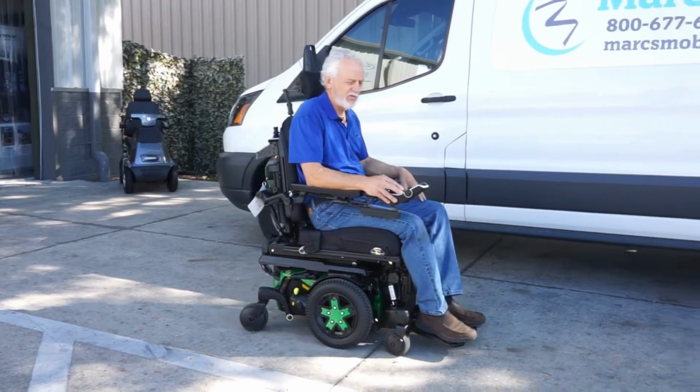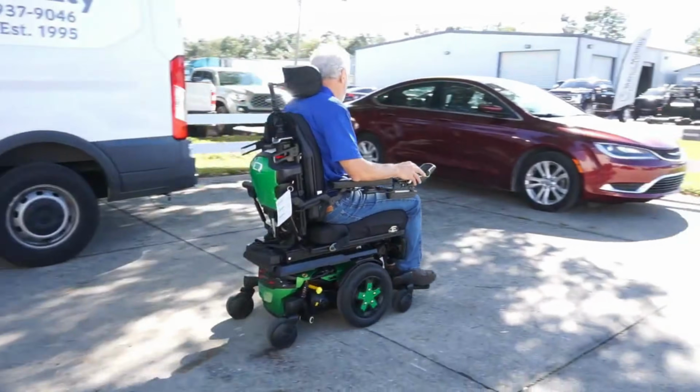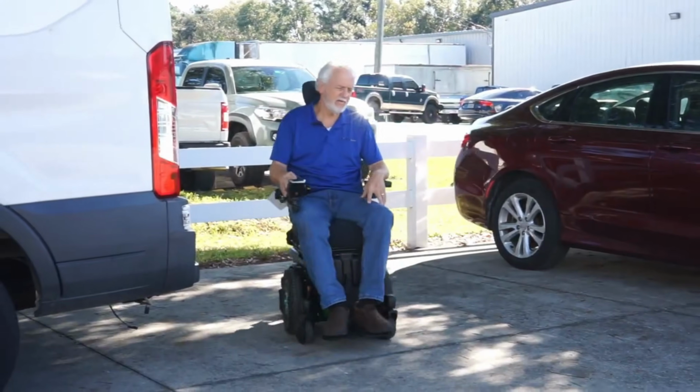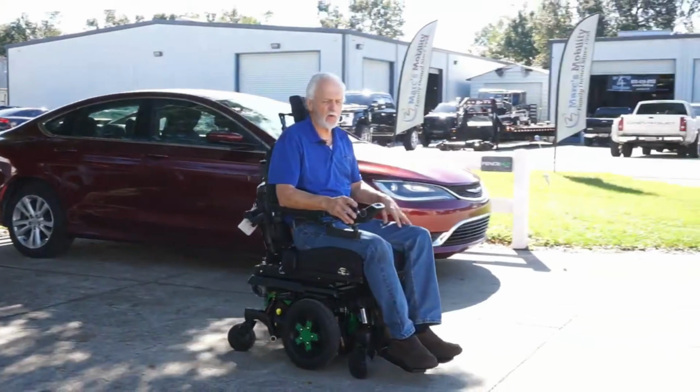Now the Stretto can also go 6.25 miles an hour and also have the TB4 seating. So if you are looking for that anterior tilt option on a new unit, that would be either the Edge 3 or the Stretto. Now, a couple similarities between the Edge 2.0, the Edge 3, and the Stretto: they're all rated for somebody up to 300 pounds. And they're also going to have a similar drive range, somewhere between that 12 to 15 mile drive range, depending on the user's weight, the condition of the batteries, and also the terrain that they're driving it on. So those are going to be the three similarities. And obviously we went over what the differences are on those units.